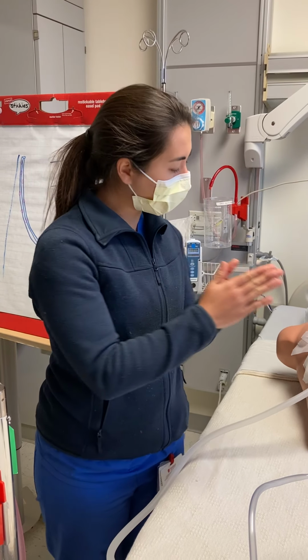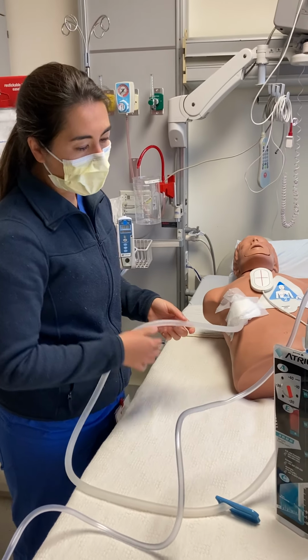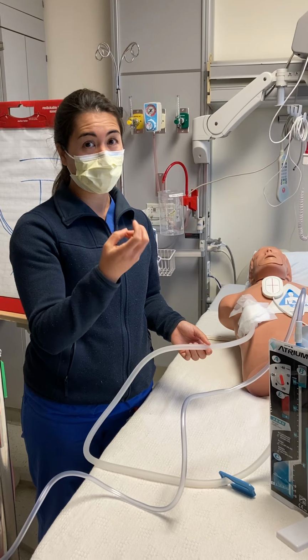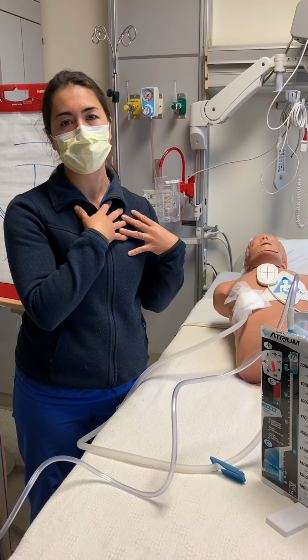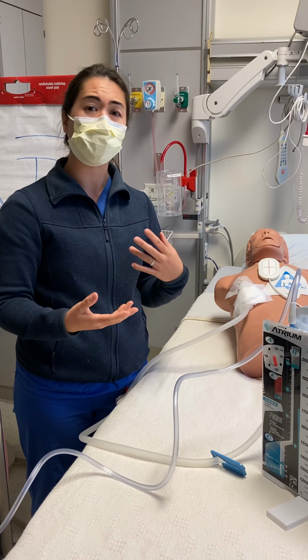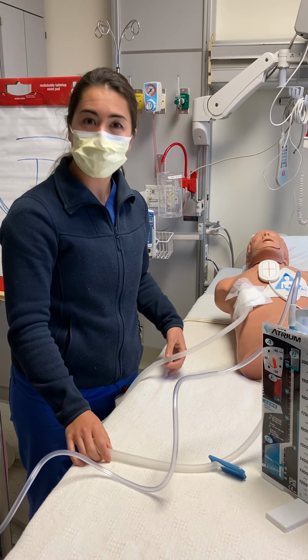And if all the air has to come out of this tube in order to see bubbles, and the air leak is very small, when they cough, they may not generate enough air for it to leak. But over the course of a few hours, they build up some air inside the chest, and then when they cough, it comes out. So if you have an air leak that comes and goes, it could be because it's really small. So I think that's about it.